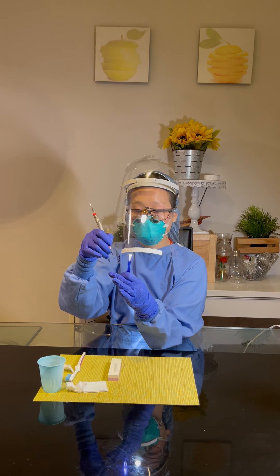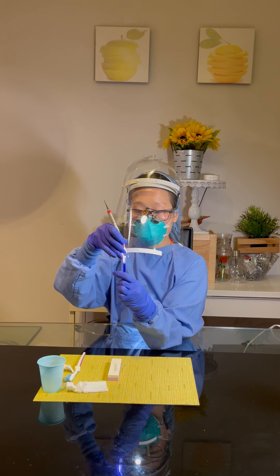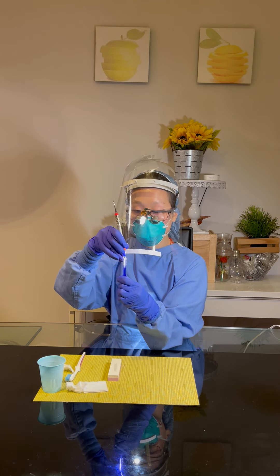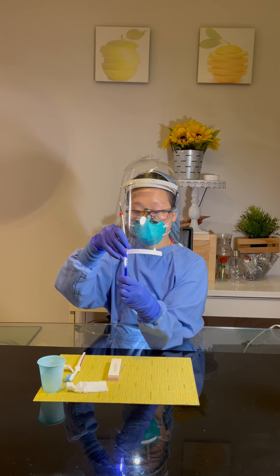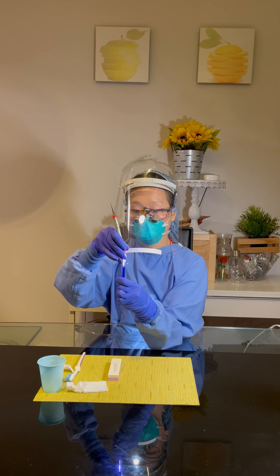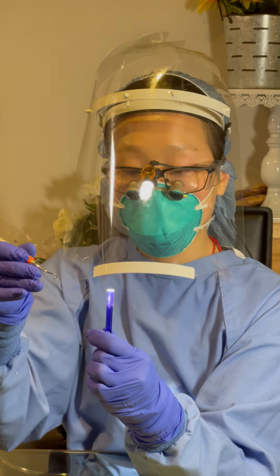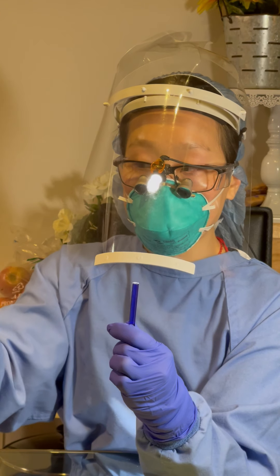For the other side of the blade of the same end, I will simply rotate the tip away from me, fulcrum my fingers, and place the terminal shank in front of me, which is behind the stick. I will test the whole blade including the heel, mid, and tip third. I will position the terminal shank slightly towards the stick on the right hand side and then test the heel, mid, and tip. The sharp instrument will bite onto the stick and when released will produce a metallic ping sound. If it's dull, it will just glide along the test stick.